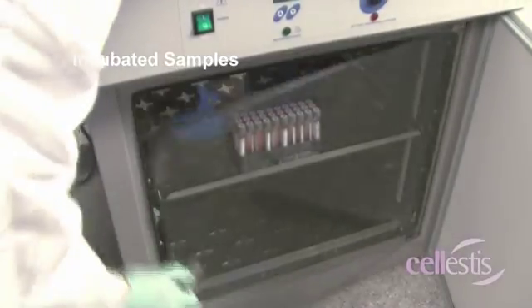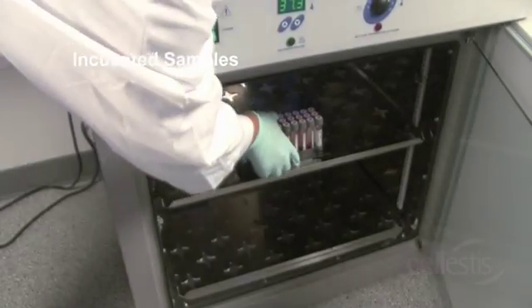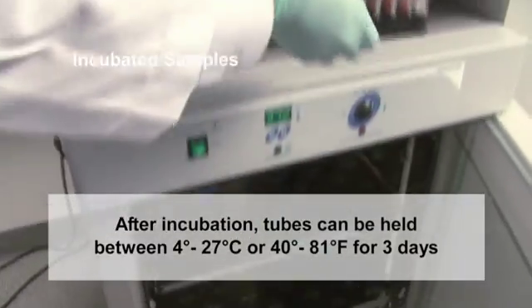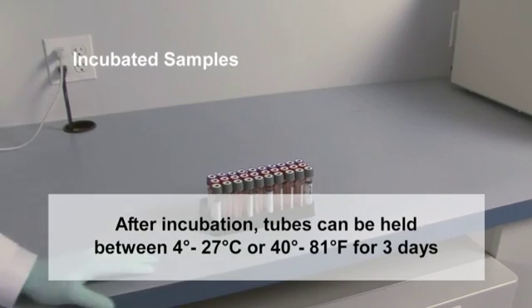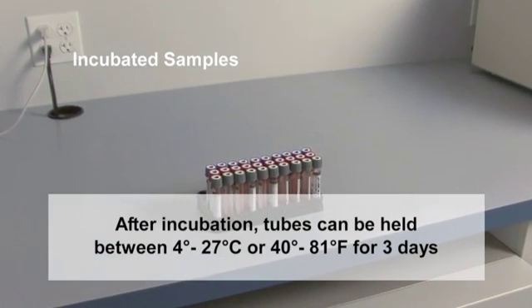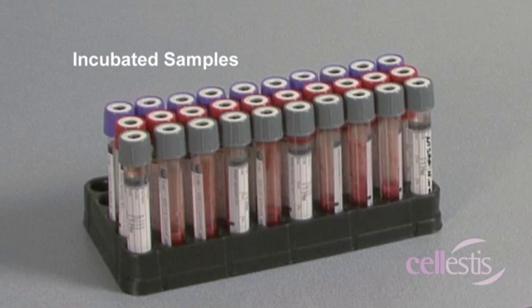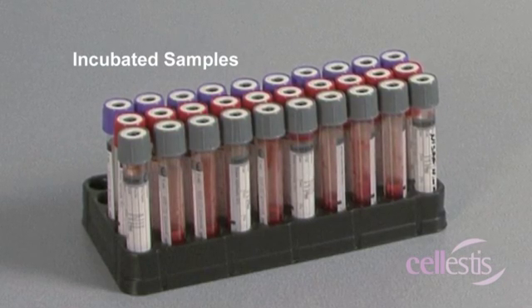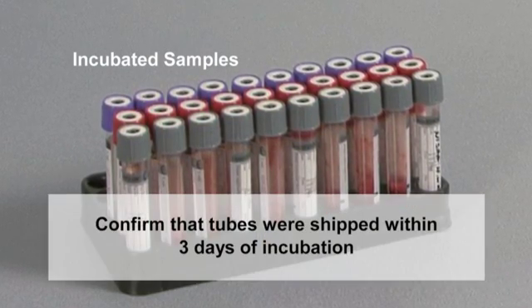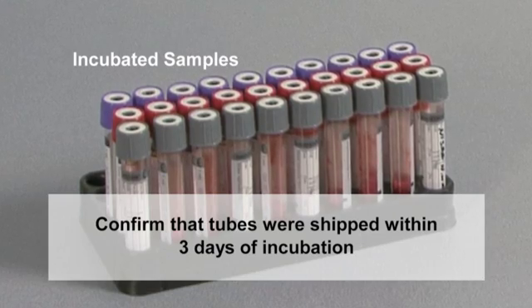Following incubation, the blood collection tubes can be held between 4 and 27 degrees Celsius, or 40 and 81 degrees Fahrenheit, for up to 3 days. Upon receiving incubated tubes from the clinic, it is necessary to confirm that the tube was shipped within 3 days of the incubation process.